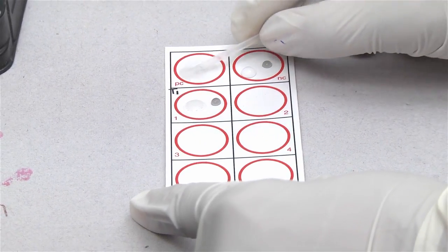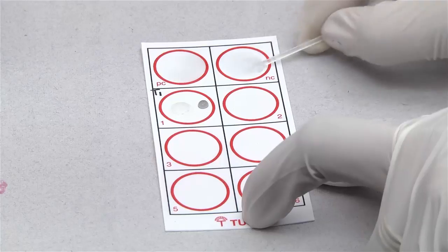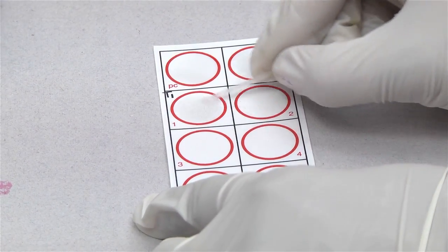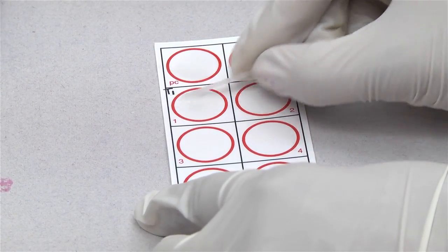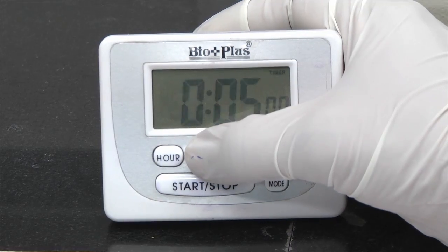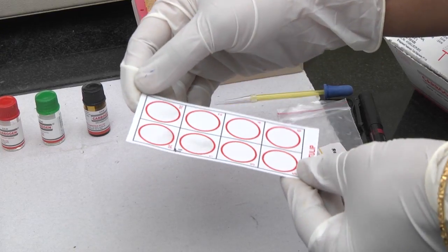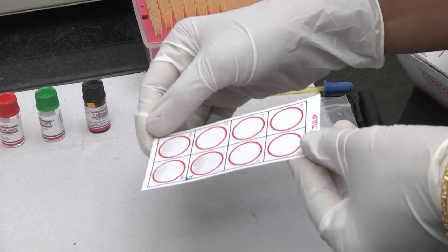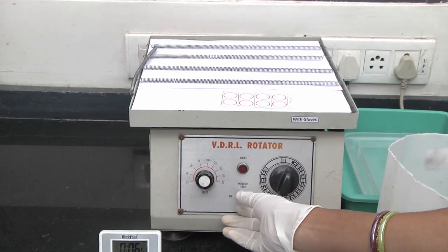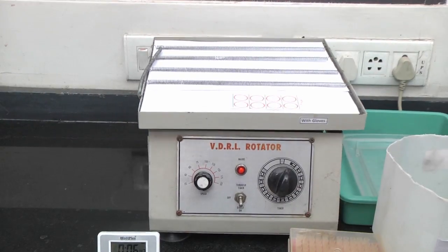Using a mixing stick, mix the test specimen and RPR antigen reagent thoroughly, spreading uniformly over the entire reaction circle. Immediately start a stopwatch. Rotate the slide gently and continuously, either manually or on a mechanical rotor at 180 rotations per minute.